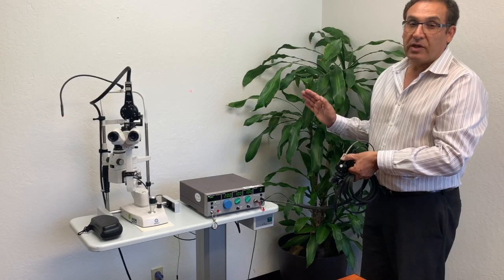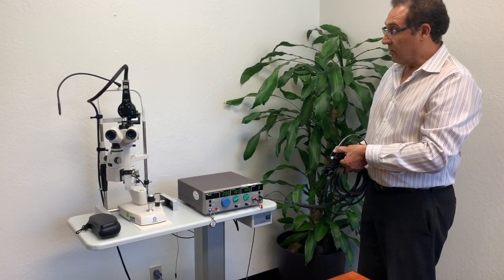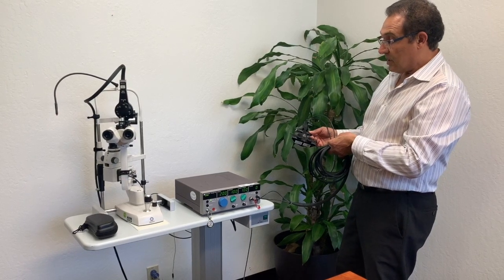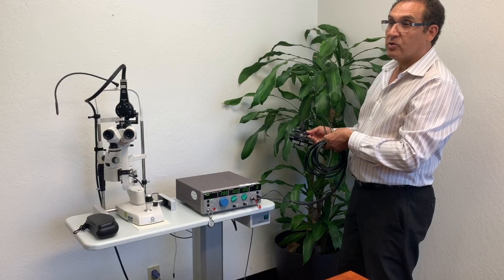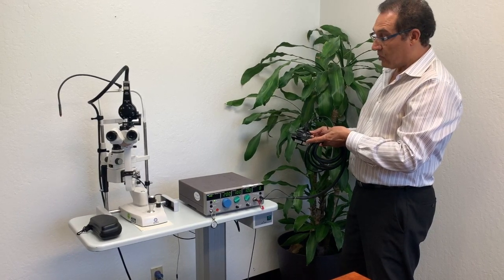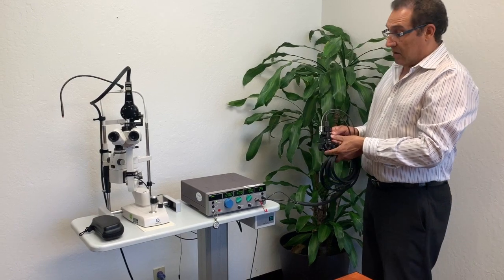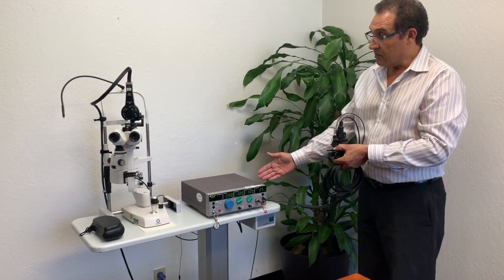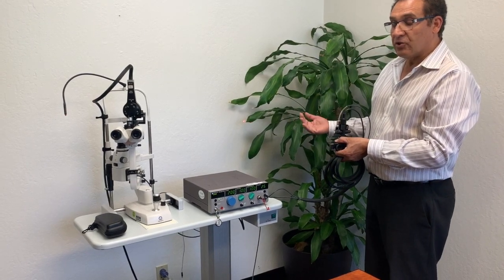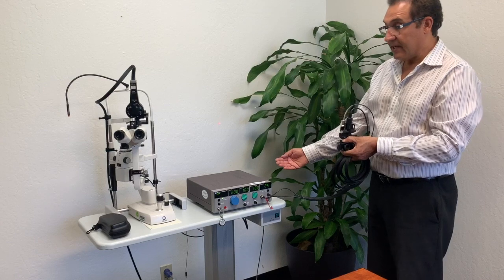I am going to do a test shot. When doing a test shot, make sure nobody is around, the laser is not pointed at anyone, and that eye safety goggles are worn. Point to a safe direction and press the foot switch. You should hear beeping indicating the laser is firing, and you can see the counter counting the number of shots. Since this laser is infrared at 810 nanometers, the treatment beam is invisible — you can only see the red aiming beam, which is at 660 nanometers.